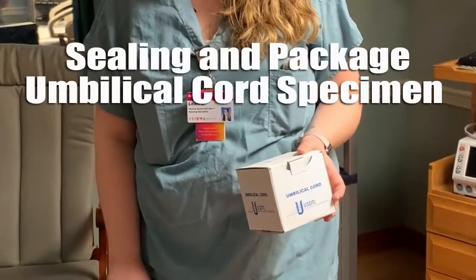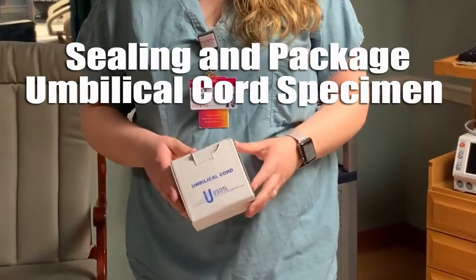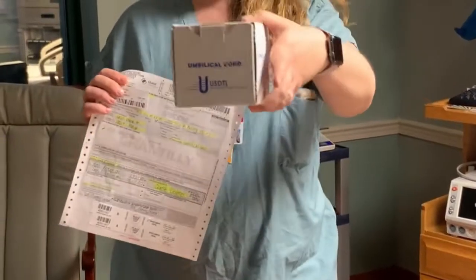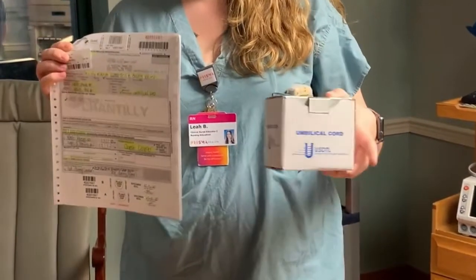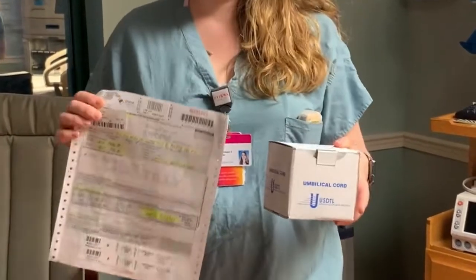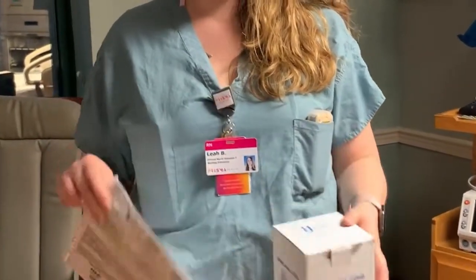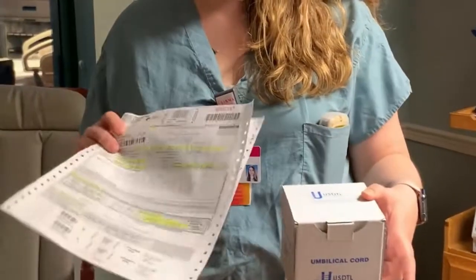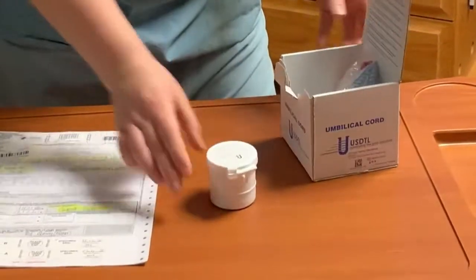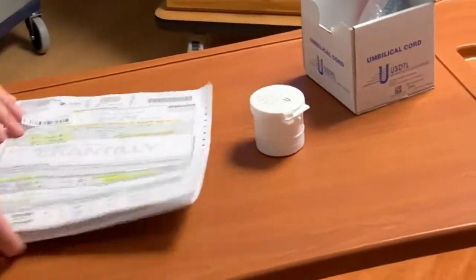This next segment is going to be how we will label the specimen cup. These kits will be this lovely little box here and the paperwork. The location of these kits will vary per campus, so your educator will let you know where these will be located. But after you grab your box and your form and you filled it out, well, initially you will open this to get your specimen cup, but we already know our cord's in here, so we filled it out.